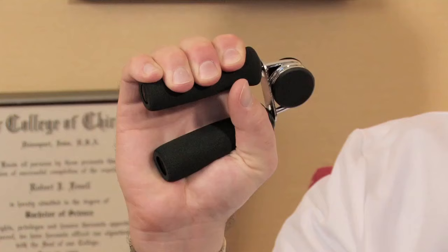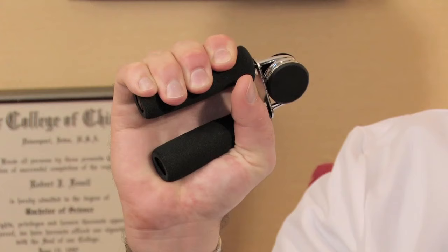Let's count together: one, two, three, four, five, six. Notice I went three seconds in until both handles touched, and then three seconds back out. You never want to go too fast. In fact, if you went longer than three seconds in and three out, that's fine — you can't go too slow. Do that for ten repetitions. Do both hands so you can give the opposite hand a rest, and you can do two sets of that on each side.